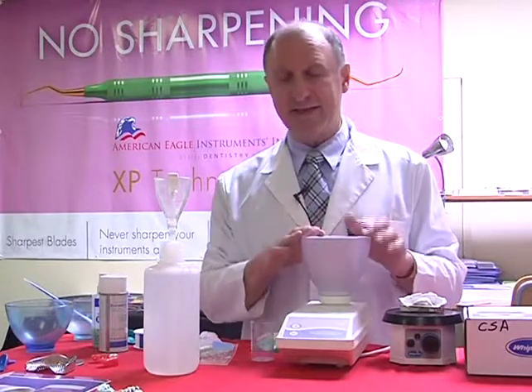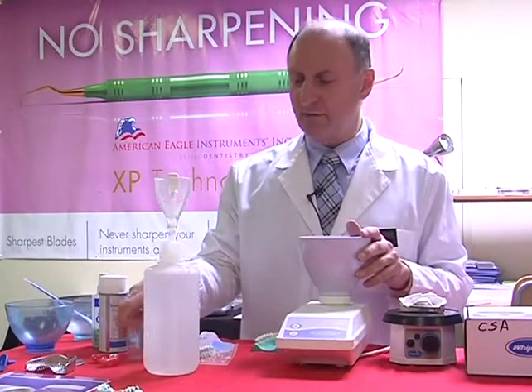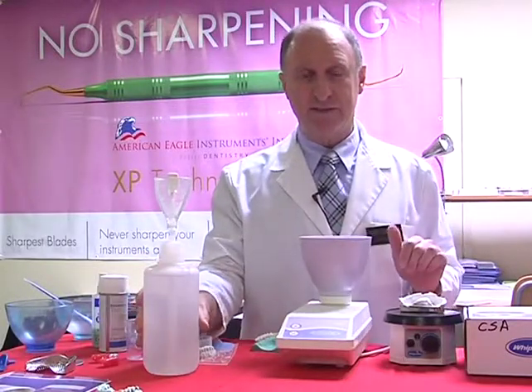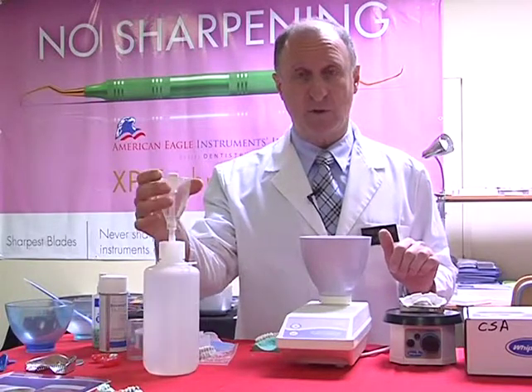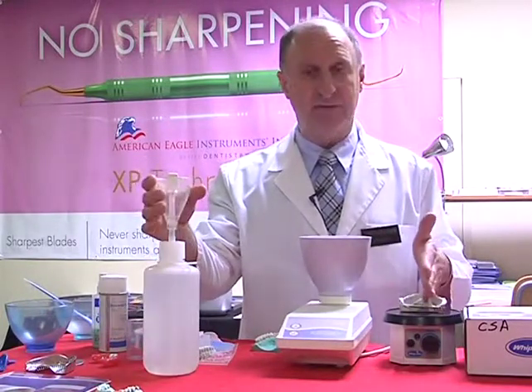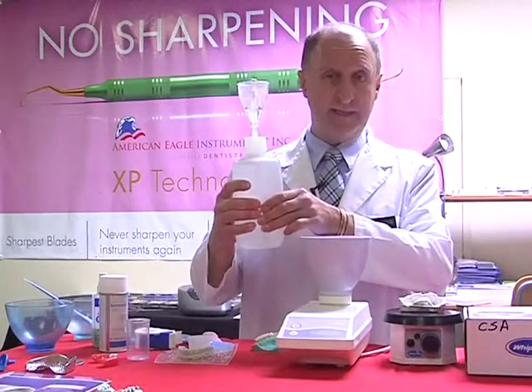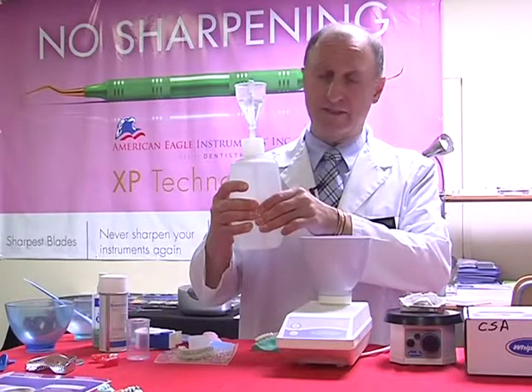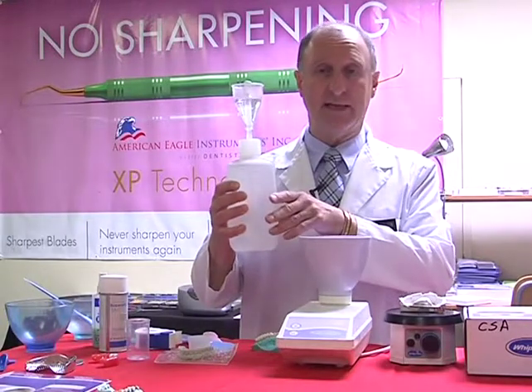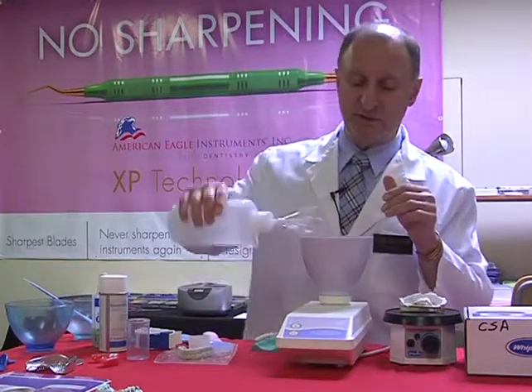So let's go ahead and do the mix of stone. Second level of water for our regular impressions. Again, if we've got a large impression, we want to change it to 3 scoops, or a single scoop if we've got a half impression. So I'm just now measuring my water. Once it's up to the white cap, just release, let go. And now put our water into the bowl.